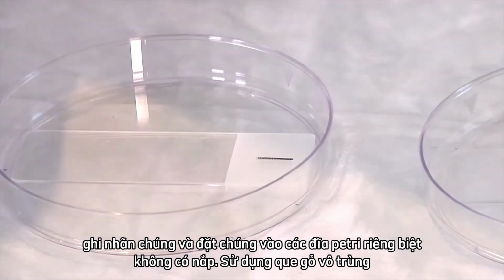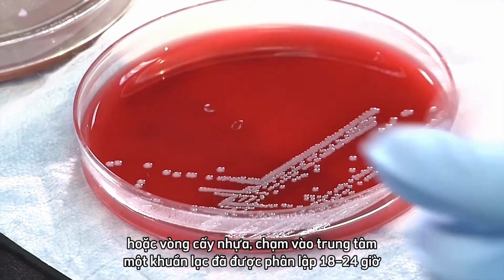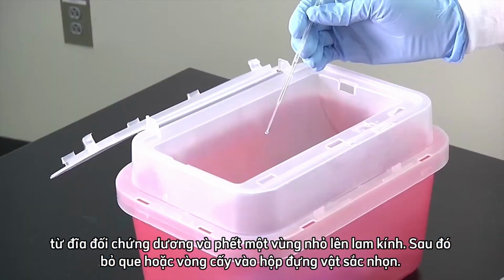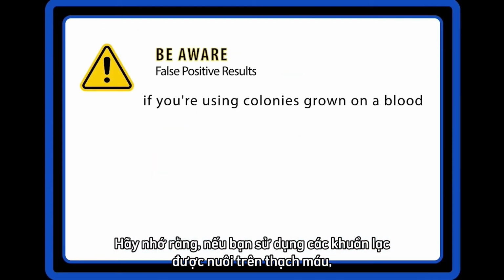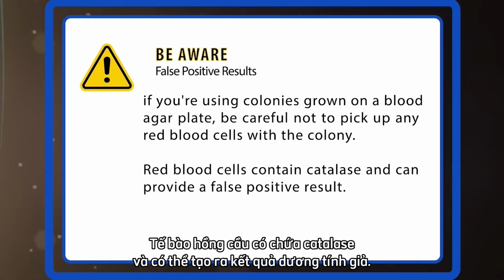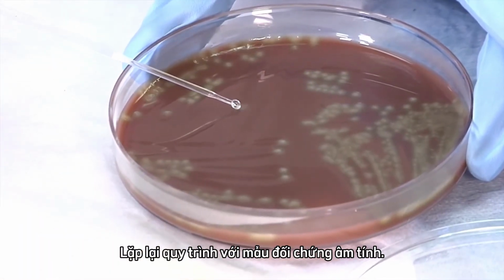Using a sterile wooden stick or plastic loop, touch the center of an 18 to 24-hour isolated colony from the positive control plate, and smear a small area on the glass slide. Then discard the stick or loop into a sharps container. Remember, if you're using colonies grown on a blood agar plate, be careful not to pick up any red blood cells with the colony. Red blood cells contain catalase and can provide a false positive result. Repeat the process with your negative control.